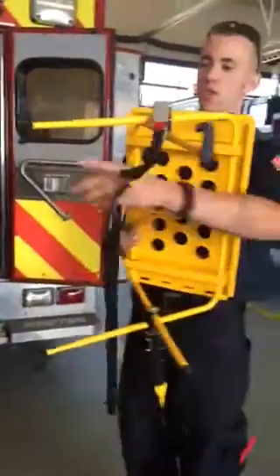You'll see there are two sides — there's a round end and a flat end. The round end goes towards the handle.